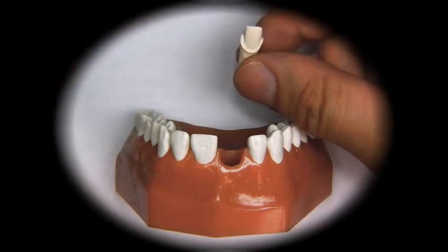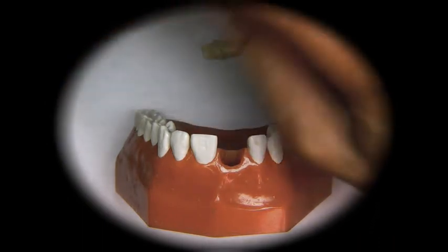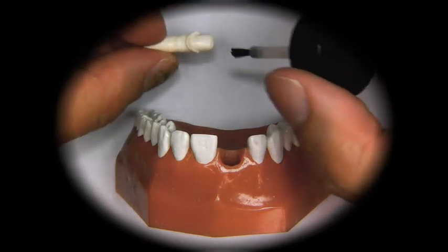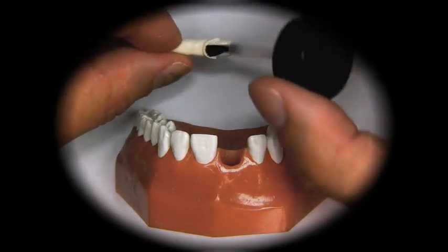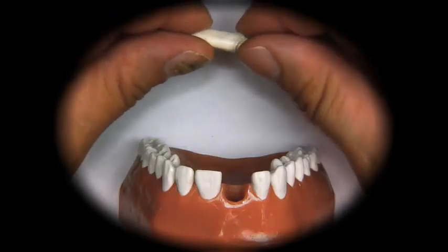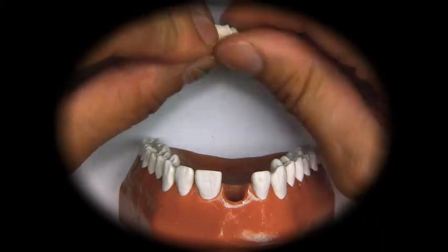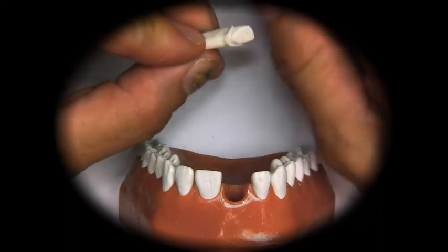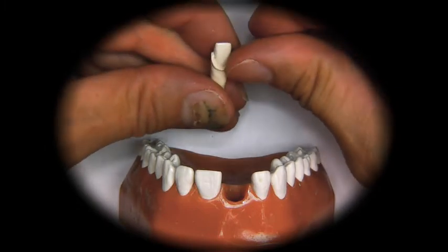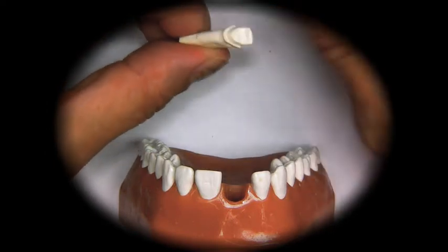The first step is to take some lubricating material, take a very little, and apply it to the die. We will further remove some from the die with our fingers, because if we leave too much lube on the die, it will fall off the die too easily.